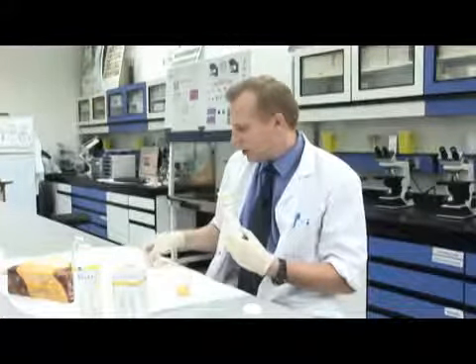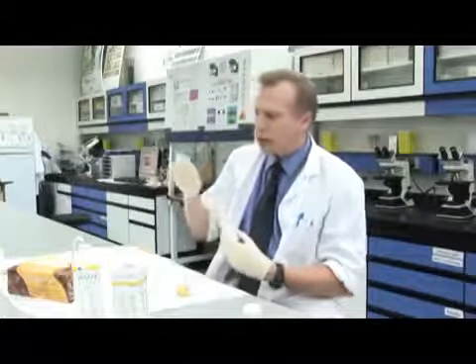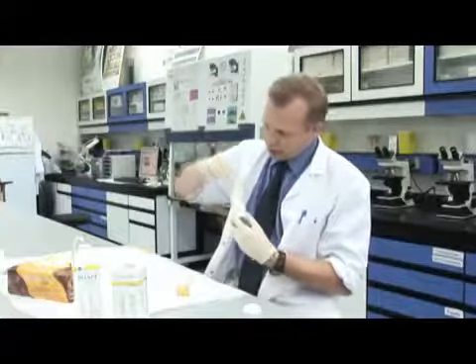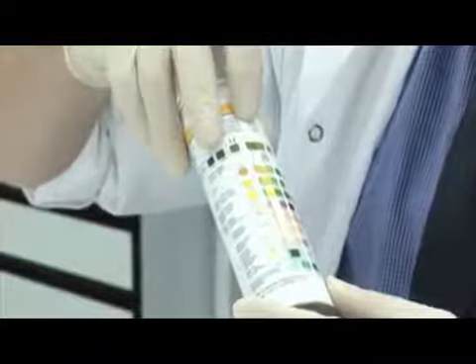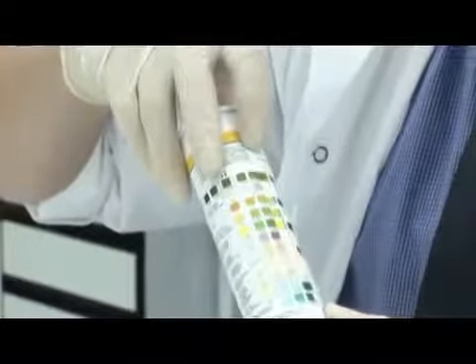Okay, I think that's probably had enough time now. Okay, we're getting a strong colour reaction there on the end. So if we hold it up to the vial like this, and then we look along it, making sure I've aligned the squares properly, I'll start at the bottom, and we've got quite a strong blue colour down there. So this one is the test for blood.